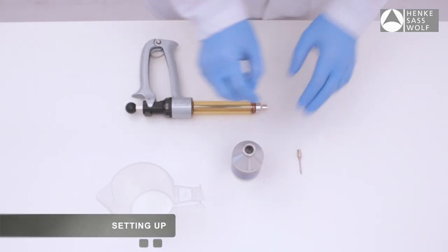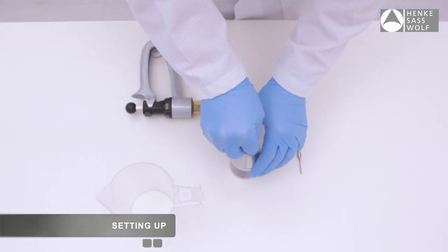At first, pierce the rubber cap of the bottle with a sterile needle before you fill the syringe.